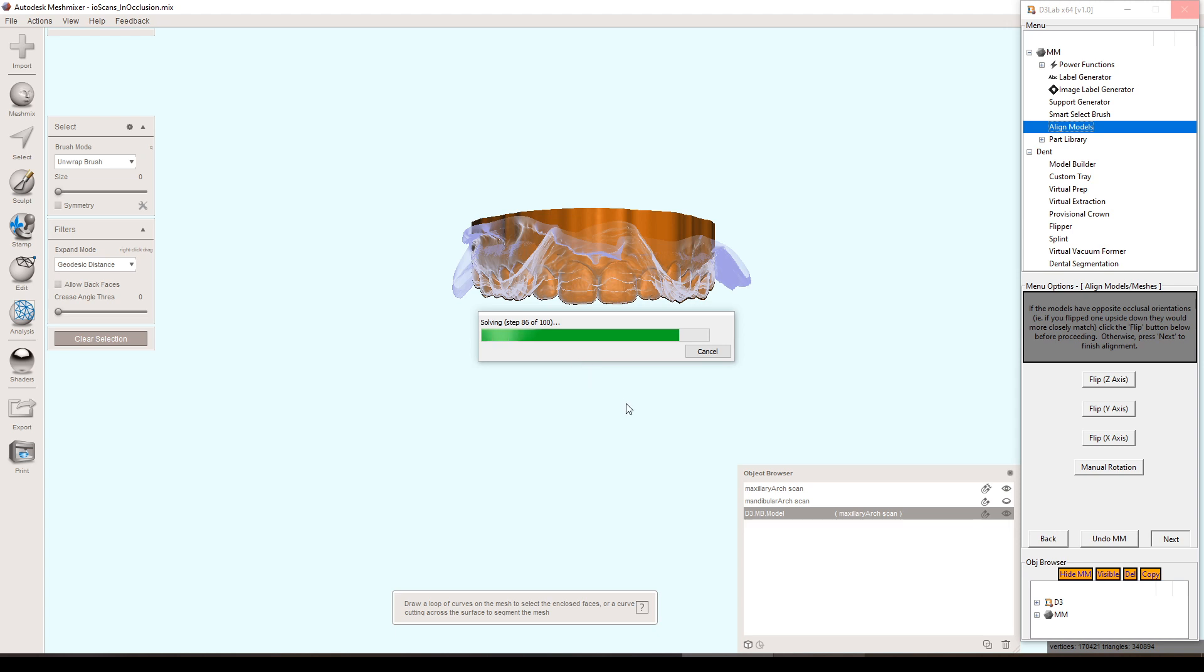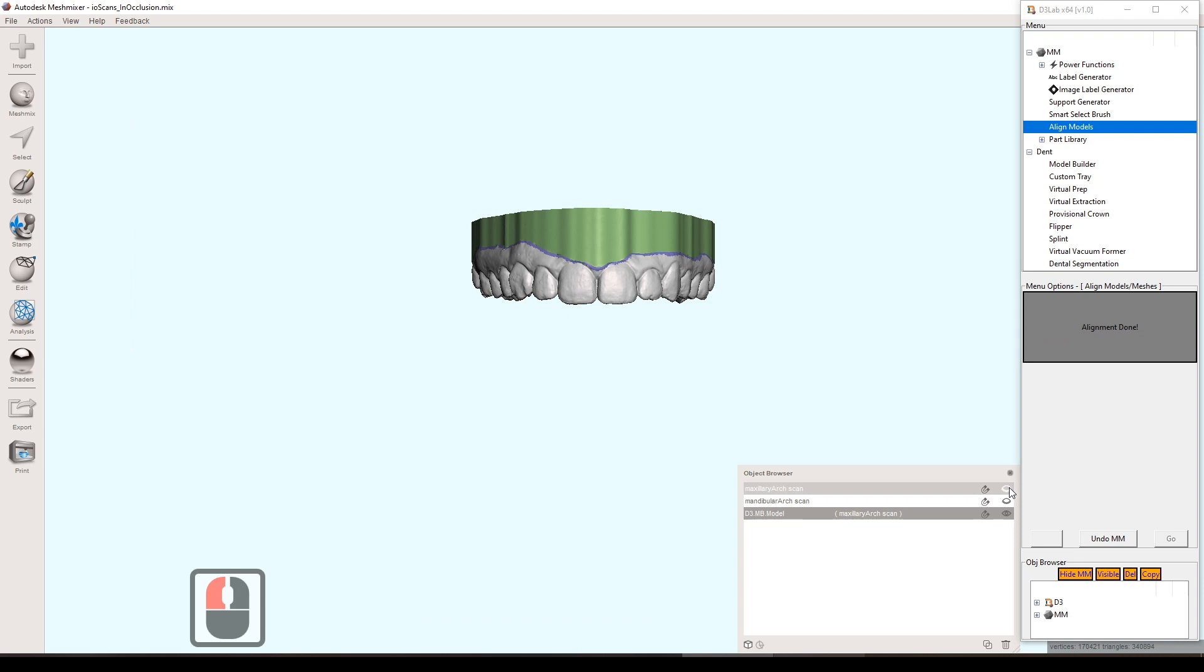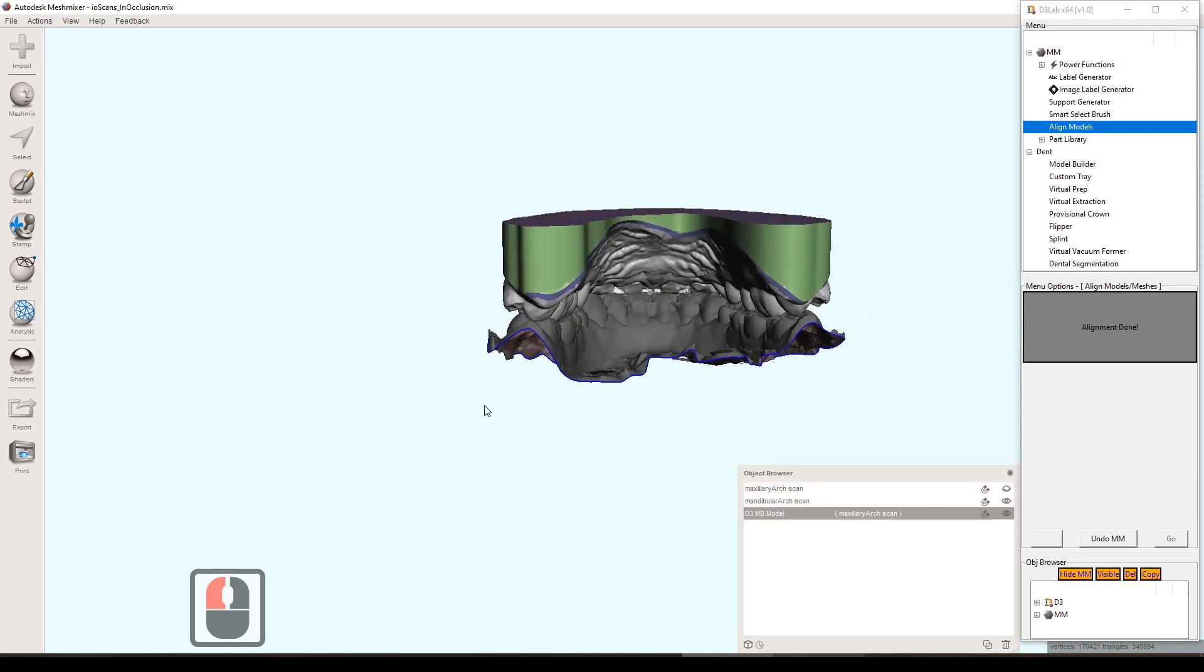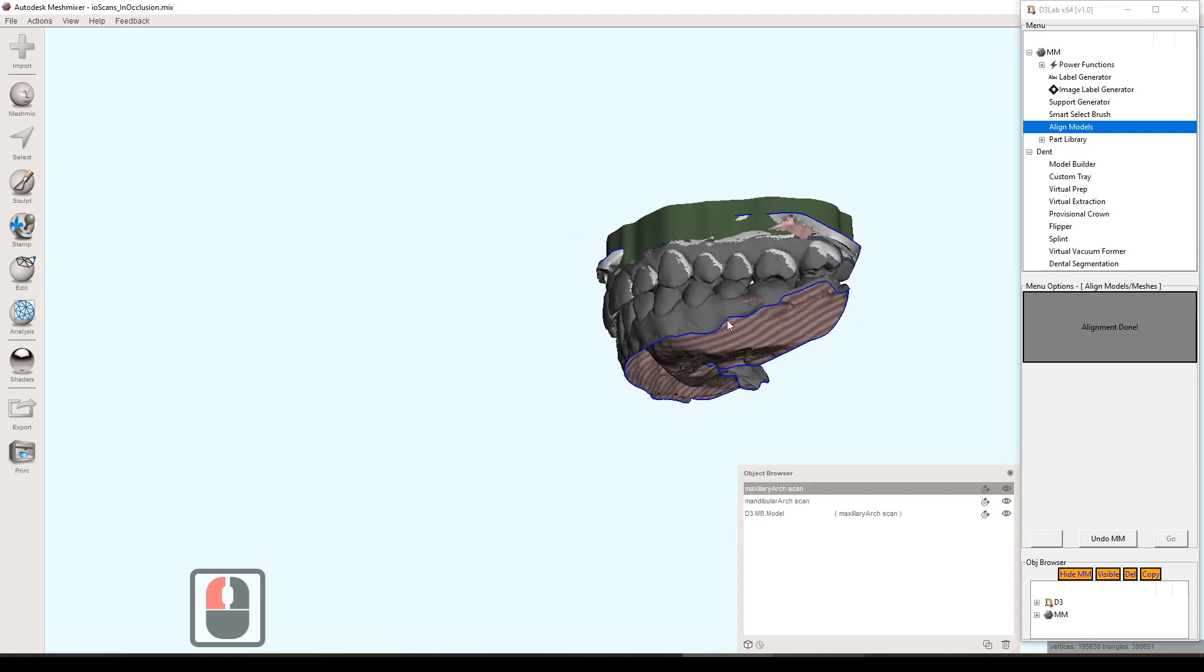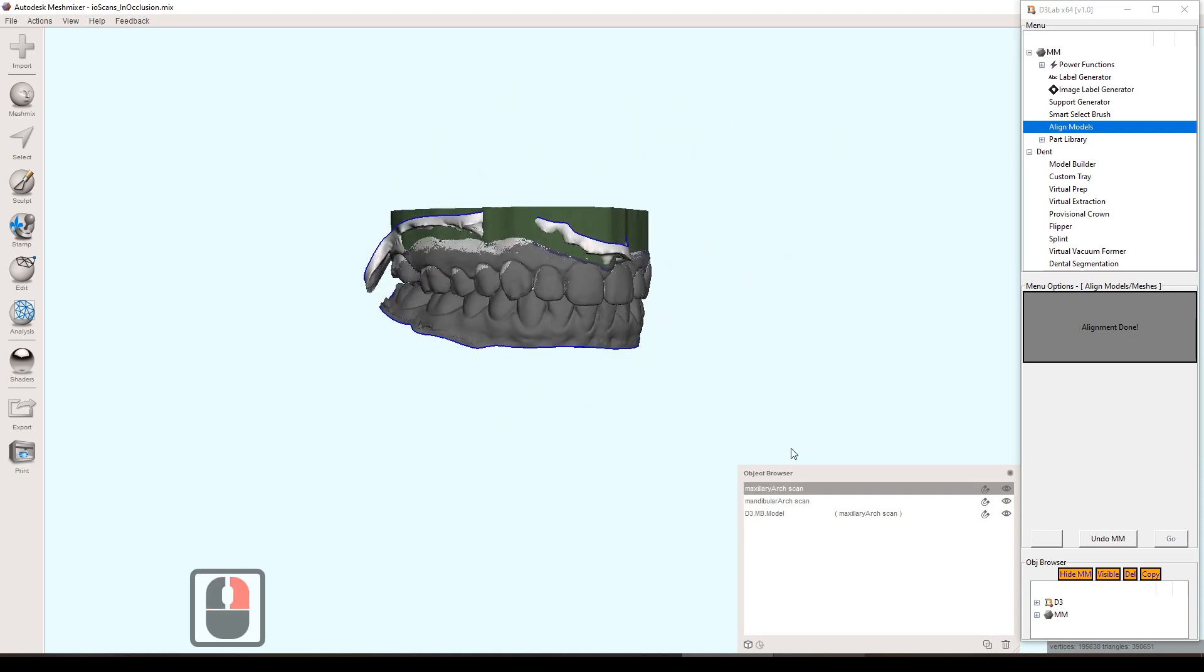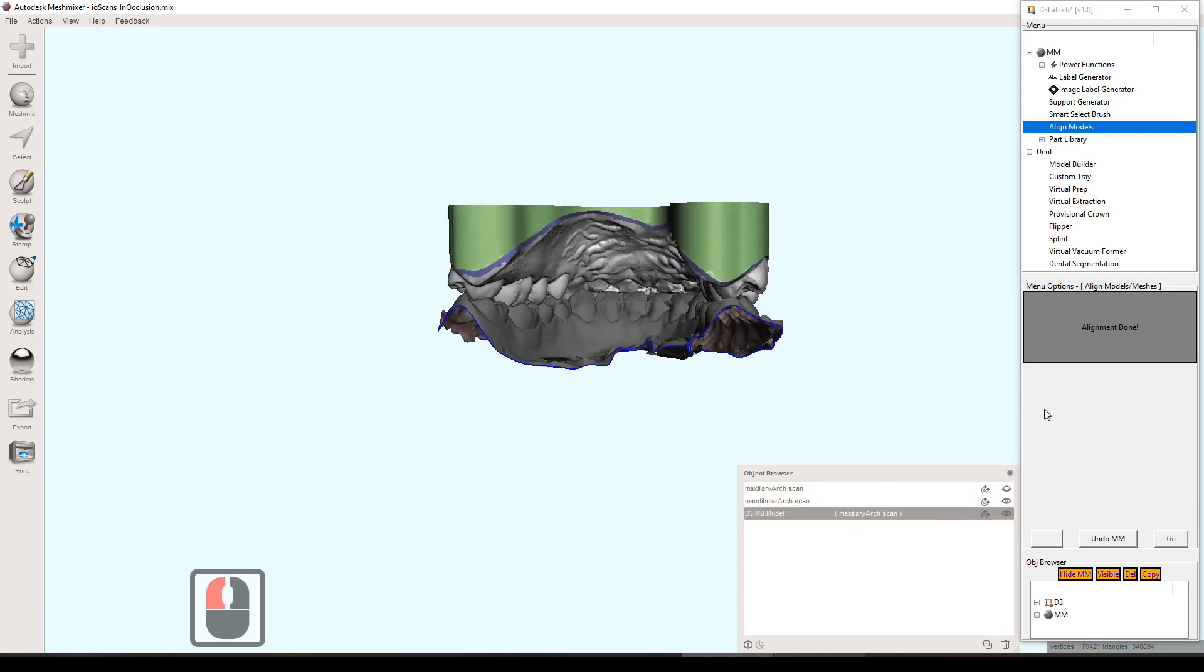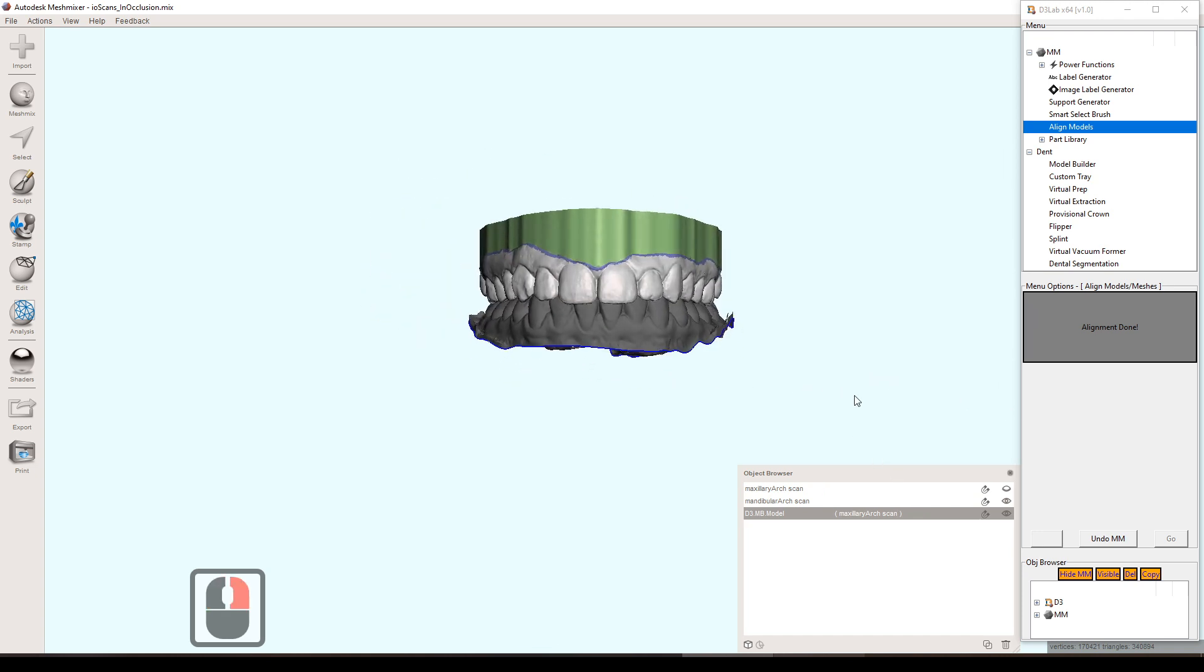And then after this finishes, everything should be aligned back to where it started. So if you bring up the original scan or the opposing scan, you can see it's back where it was originally with the base. If you pull up both the scan and the base model, you can see that weird kind of overlapping camouflagey look. That's a sign that things are right on top of each other. So that's a good thing. And yeah, it's a good feature to have. So that's now included.